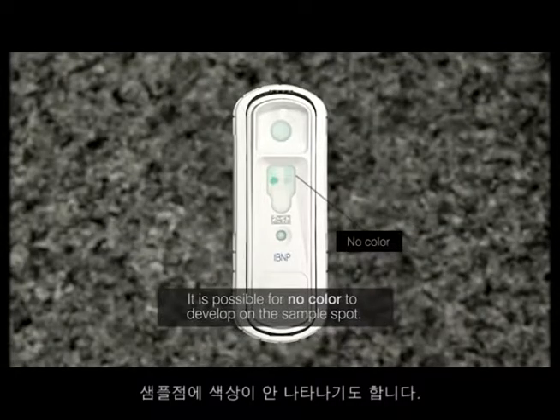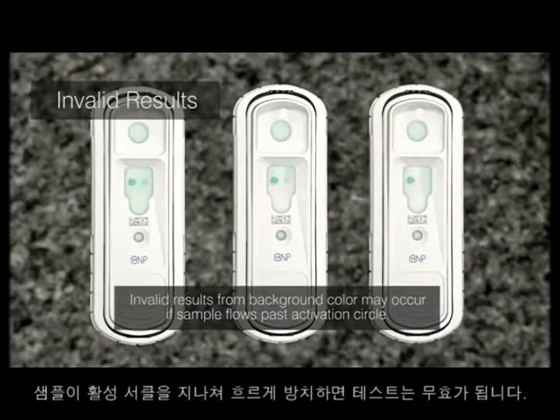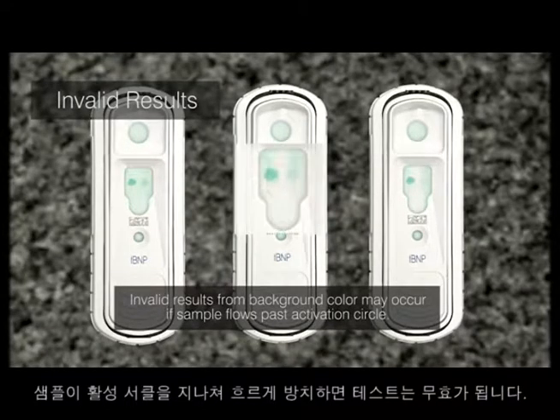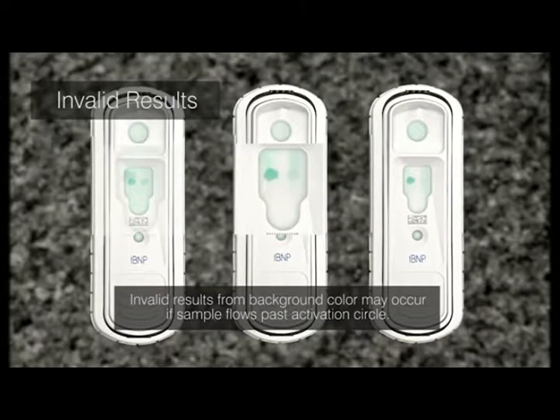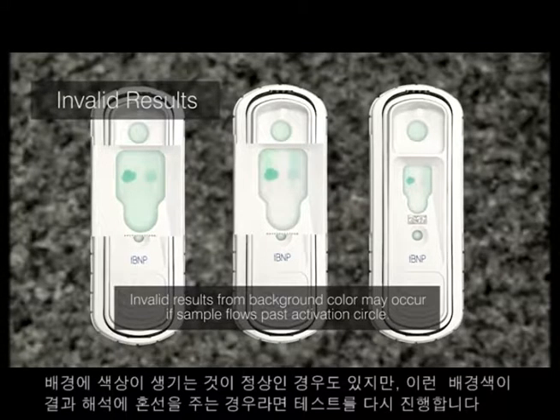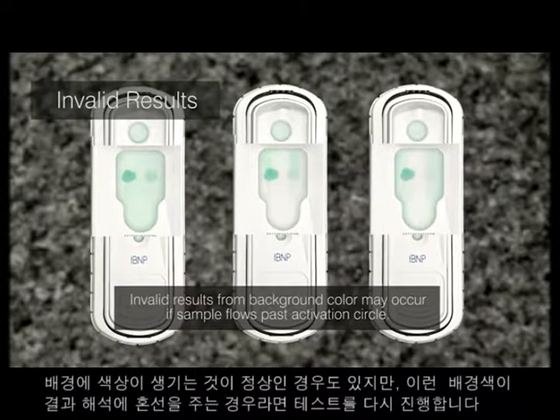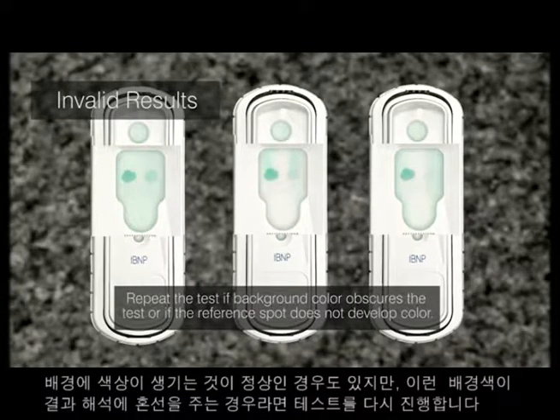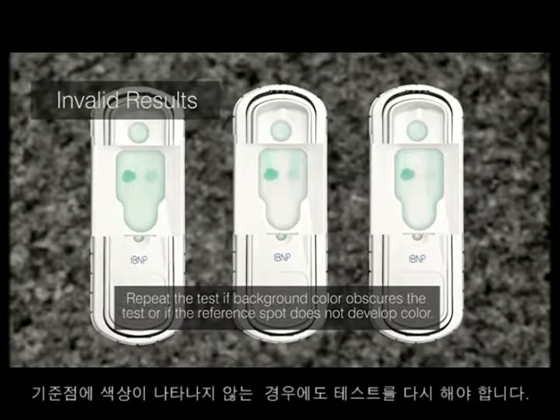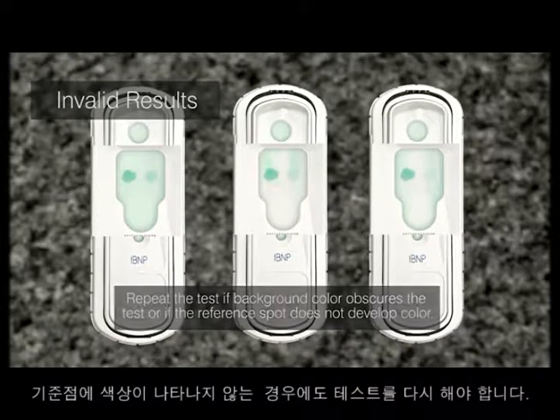Note: it is possible for no color to develop in the sample spot. You may get invalid results if the sample is allowed to flow past the activation circle, resulting in background color. Some background color is normal. However, if colored background obscures the test result, repeat the test. The test may also need to be repeated if the reference spot does not develop color.